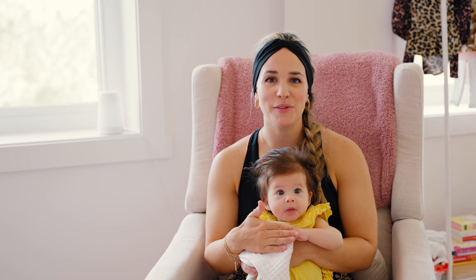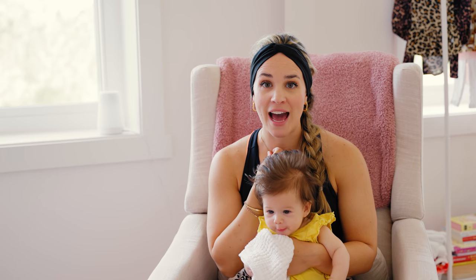Today Scarlett and I are going to review the Owlet Sock Generation 3, that's the one that we have. I know this is a big purchase — it's expensive in my eyes — and so I want to make sure that if you're sitting at home wondering if you should get it or not, you feel totally comfortable making a decision about whether to purchase the Owlet Sock. Just to preface this, I got the sock but not the monitor. I heard the monitor wasn't worth it, so I just got the sock.